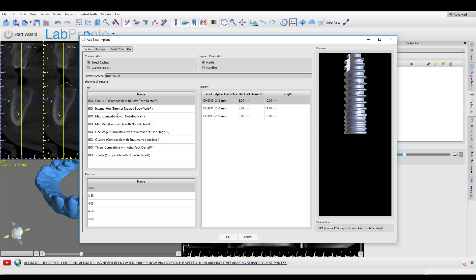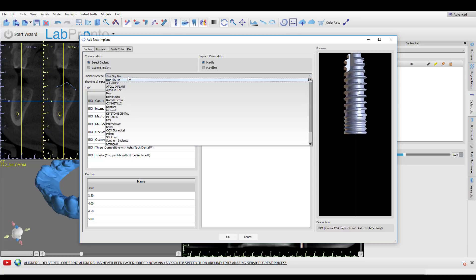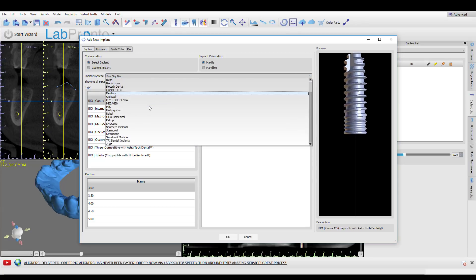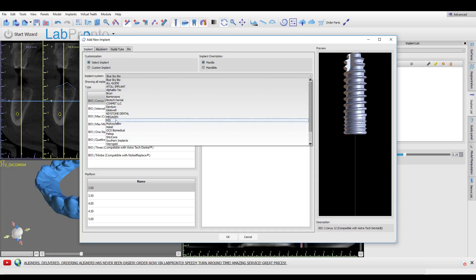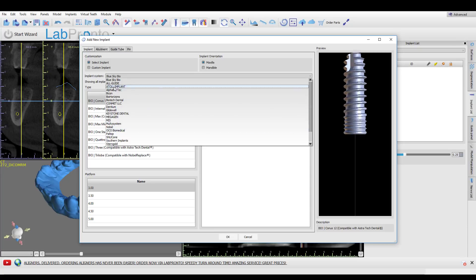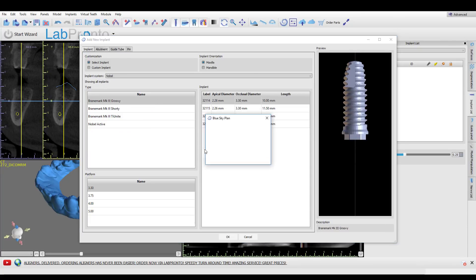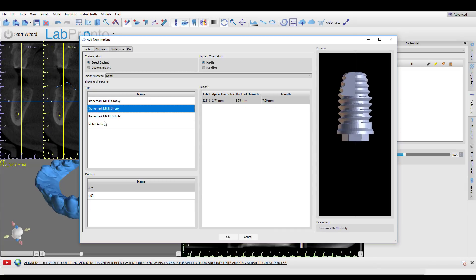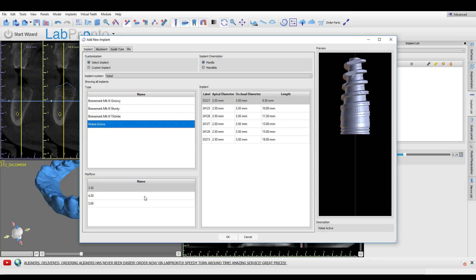Most of the larger name implants are there. Right here I've gone to 'Add Implant' — you can see it defaults to Blue Sky Bio, but if I click on this dropdown menu there are a lot of different systems present. Let's take Nobel for example. If we select Nobel, we've got the different settings available, so if you're doing a Nobel Active and want to use their surgical kit, this is going to make everything default to the correct settings.